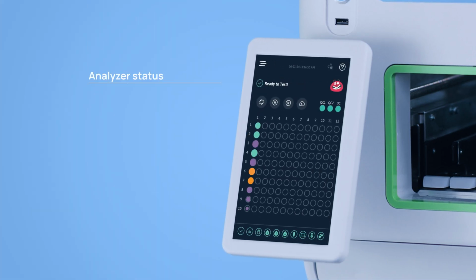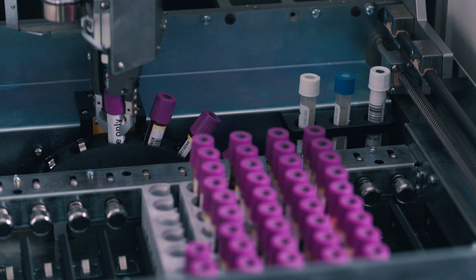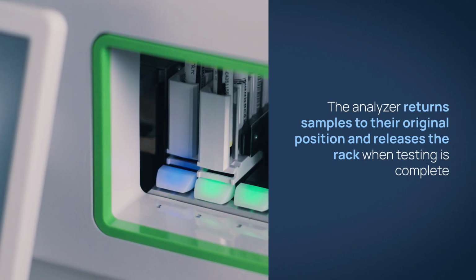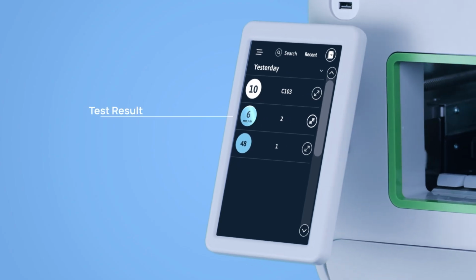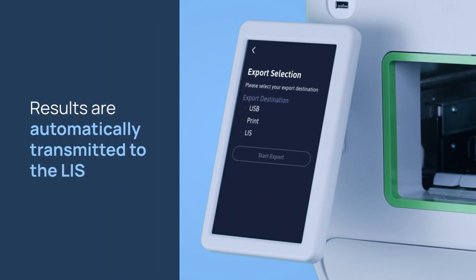The home screen displays useful information at a glance. The analyzer returns samples to their original position and releases the rack when testing is complete. Results can be accessed via the result log. Results are automatically transmitted to the LIS.